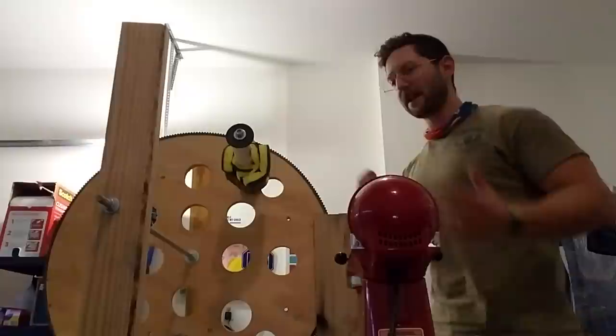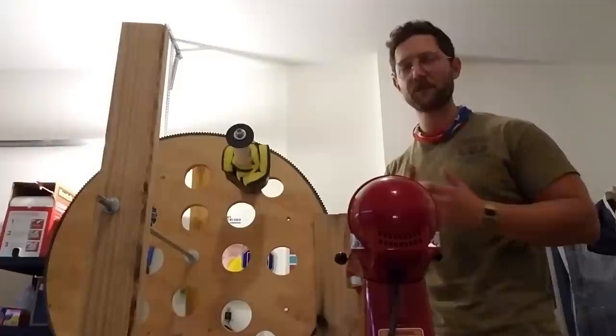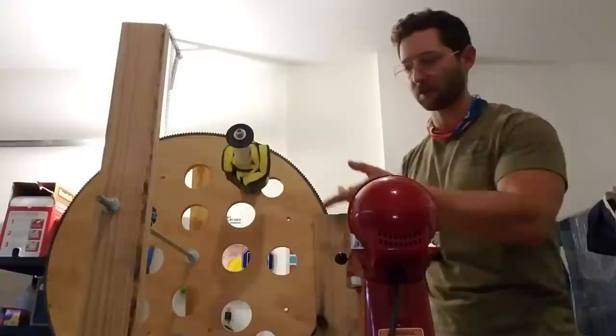To get into that — first, before I show you how it works — you need to understand that an ICU mechanical ventilator has to do four things. Two of them are for oxygen, two of them are for ventilating CO2. Oxygenation is actually the easier part of the two. FiO2, fraction of inspired oxygen — basically, give someone extra oxygen. Put them on an oxygen mask, you can put it into the tube however you want. That's easy. You can hook an oxygen tubing up to our bag valve mask here.